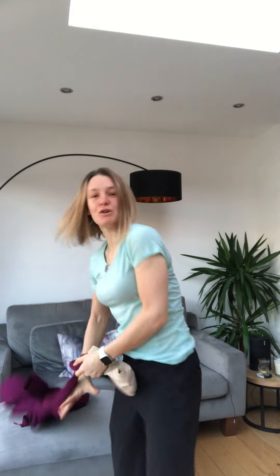I'm doing this early in the morning because my stoma bag is nice and clean, so you're not subject to any of that stuff. You put it on inside out, then the clips come off.